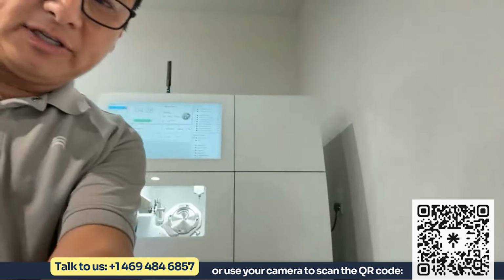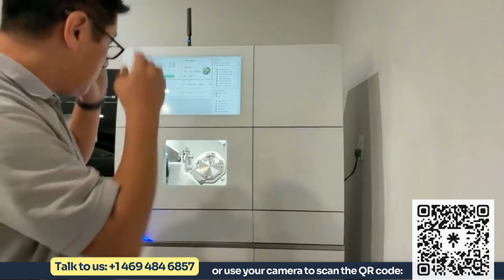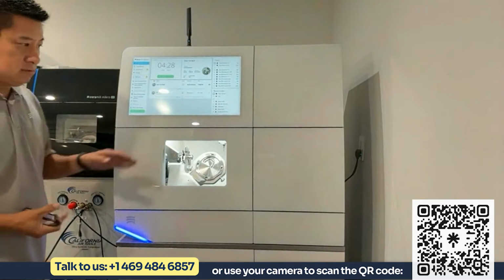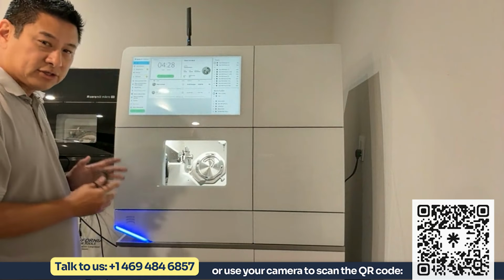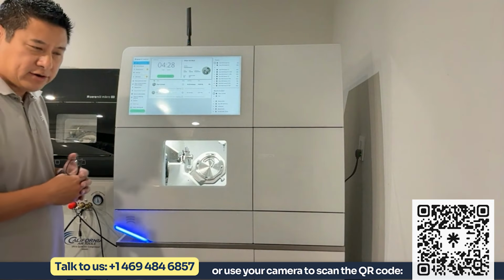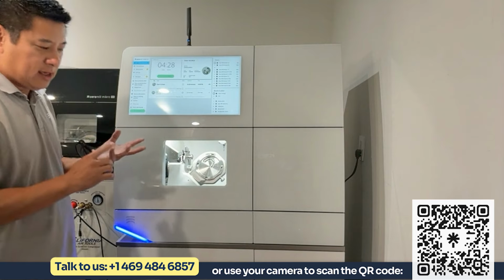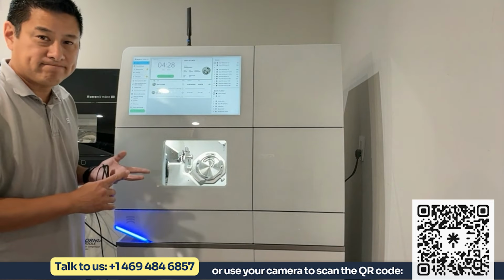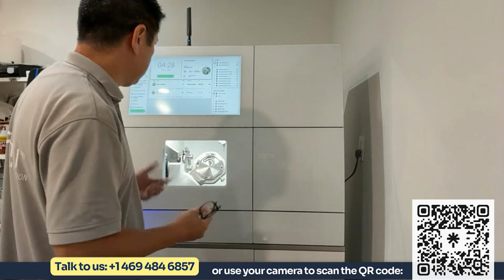There we go. Okay, so this is the matron. This is the second mill that we were talking about, or the third one on your sheet, really. Now, the matron is everything that the Motion 3 is, except for the compressed air. So this mill does require an external air source. The amount of air that is required is 4 CFM, 4 cubic feet per minute of air at a minimum of 90 PSI. Okay, so not a ton of air, but not a very, very small amount either.